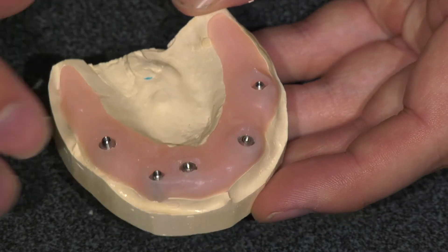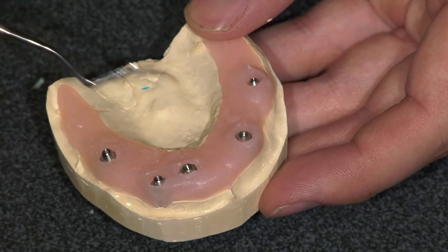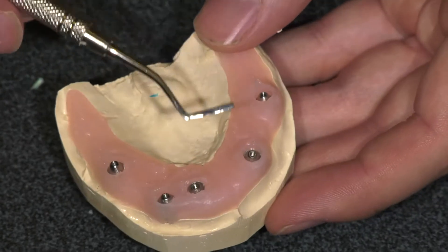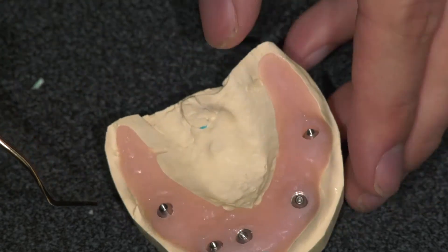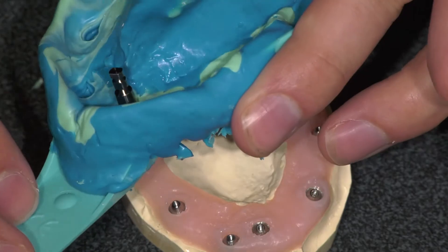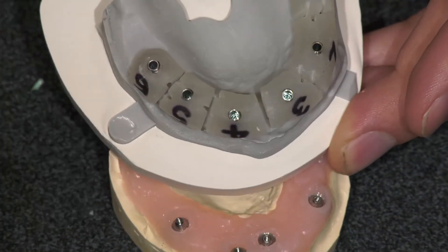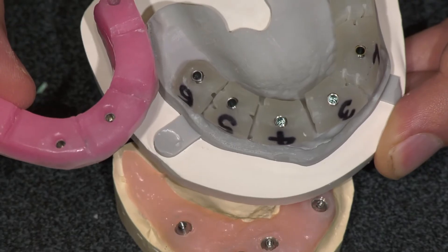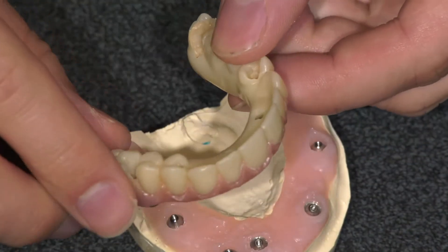Hopefully that makes a bit more sense on how we go from this step for your patient to final. In our clinic it's one preliminary impression visit, and then the next visit will be a V-jig and a wax rim, and the third visit will be a provisional PMMA.